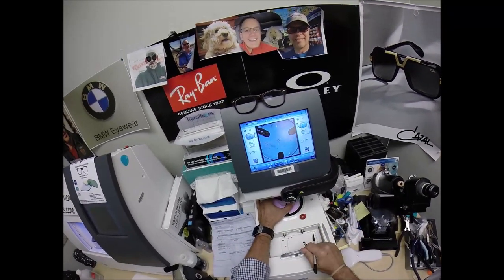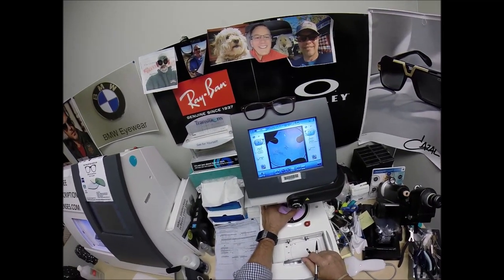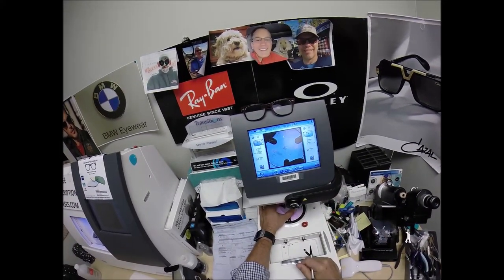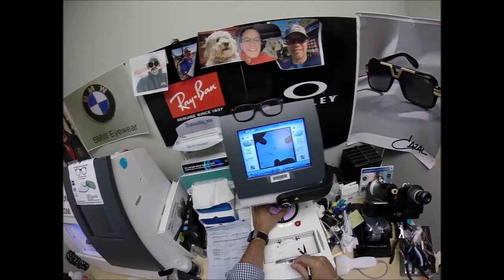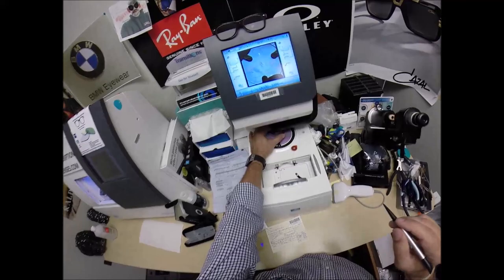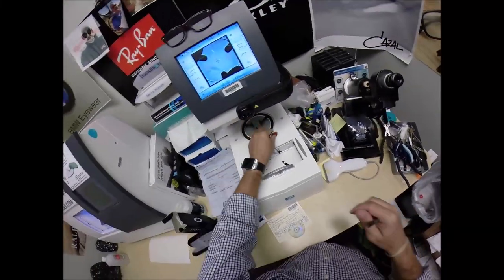Change the layout screen to progressive and get everything laid out as such. Make sure the lens is large enough to fit, and it is. Hit that button. The arm's going to come down and place a block onto the right lens.